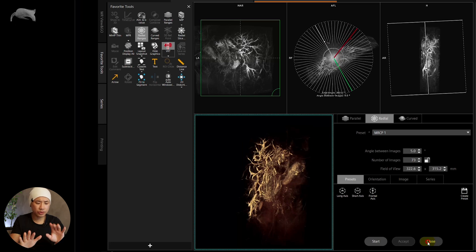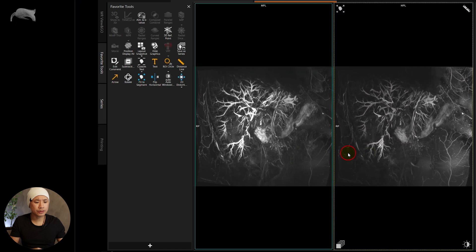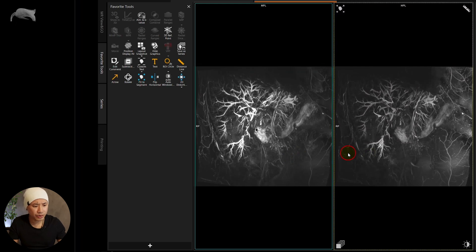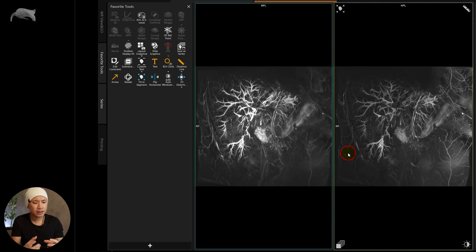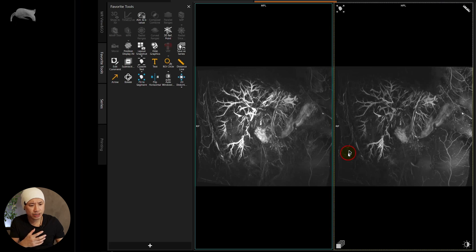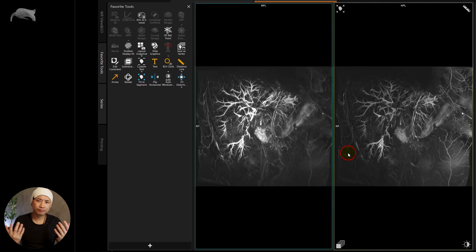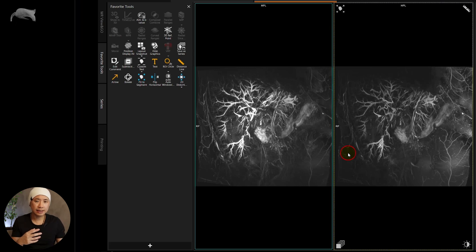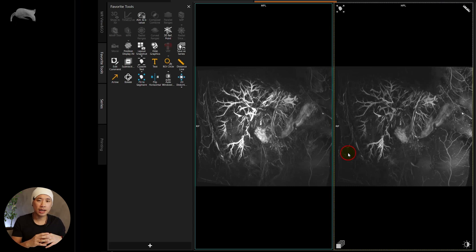Now let's compare these two side by side. Pre-scan OFF versus pre-scan ON. This is where I want to have that punch of the bile duct — more homogeneous throughout versus high/low/low areas here. So it should definitely be ON. However, I want to show you how you can retrospectively turn it on if you somehow scanned with it off — you have the possibility to do so without needing to rescan the patient.